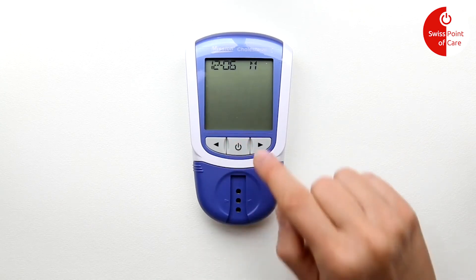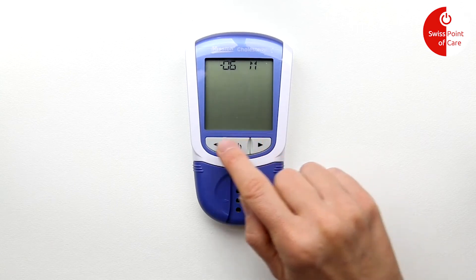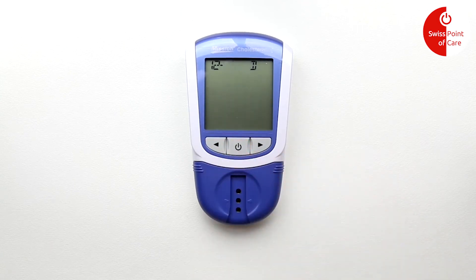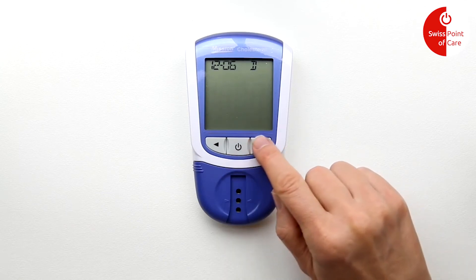Use the arrows to set the correct month and day, then press the power button again to confirm. Note that the display will show the month/day format and will switch to the selected time format after the official setting. Press the power button again to confirm.